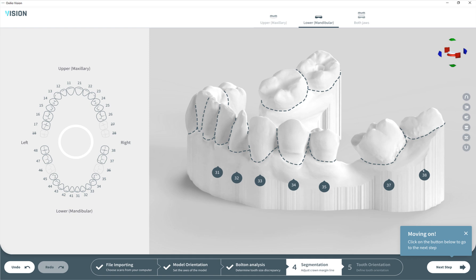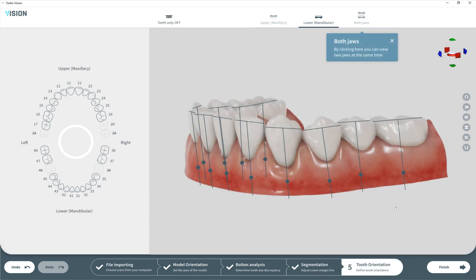Section four is complete, we can move on. Here we can see our teeth are perfectly segmented with a pretty nice shiny texture of the jaw and the teeth.